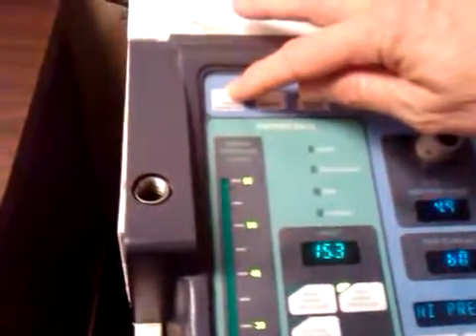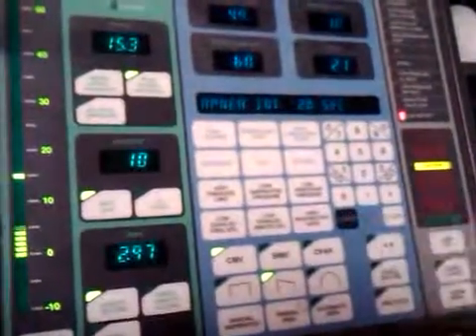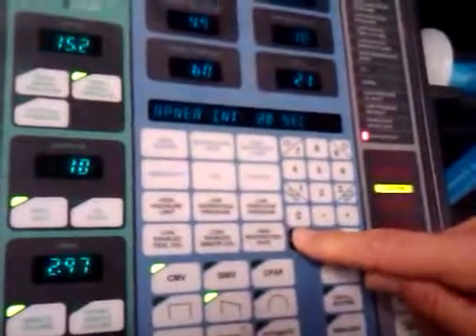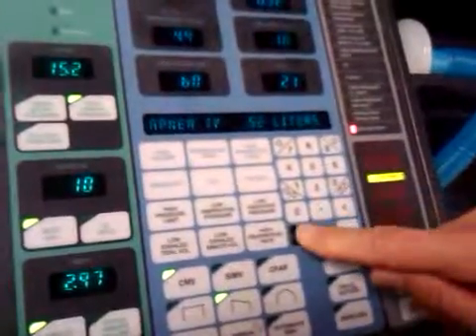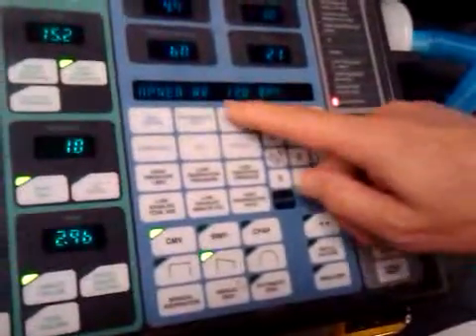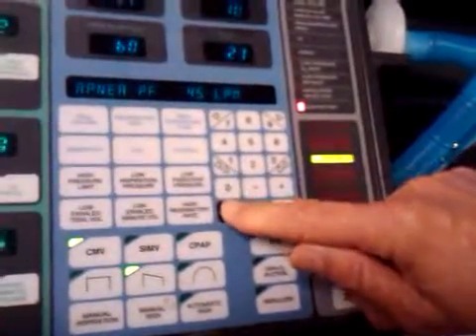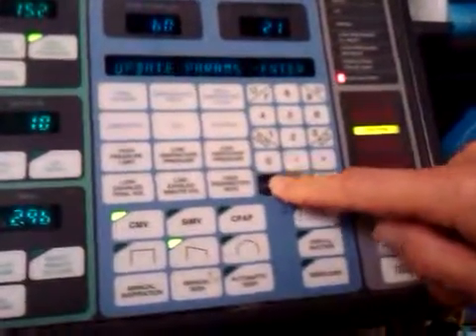Under the ventilator settings section, you push the apnea parameters key. That brings you to volume apnea parameters. You push enter. Then you put in the apnea interval, enter, enter. Then the apnea tidal volume should be the same tidal volume that you have set for the patient. Enter, enter. Then you have the apnea respiratory rate. We're going to put 12 because that's a normal respiratory rate. Enter, enter. Flow rate, 45 is fine. Enter, enter, enter. And then FiO2, 100%. Enter, enter. Update parameters, enter.